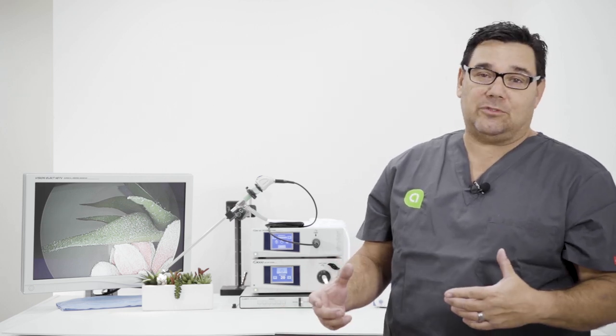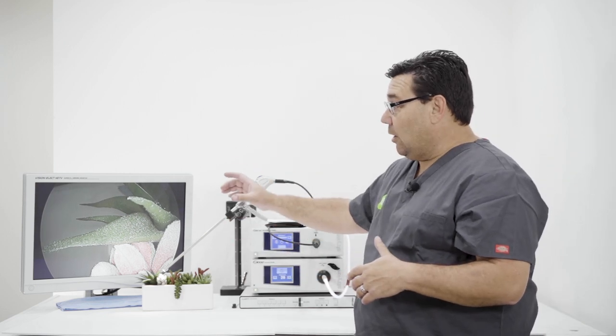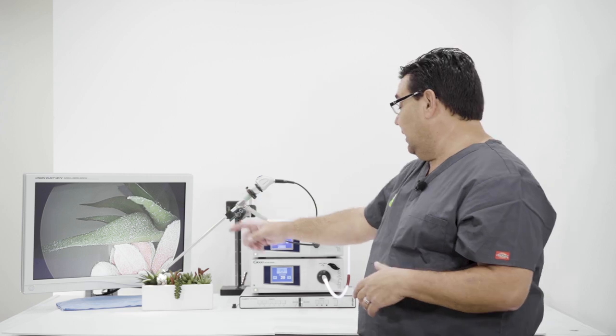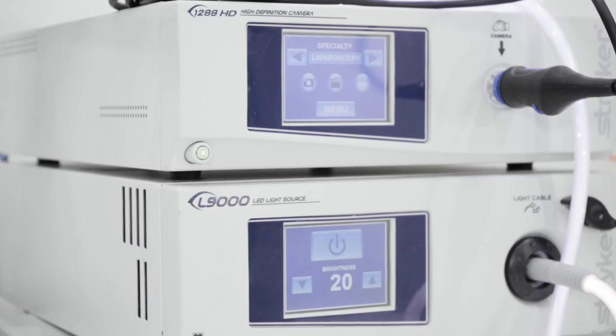Before you use the system, basically if you look here, our video is hooked up. We have our VisionElect TV, we have our 1288 CCU, we have an L9000 light source.